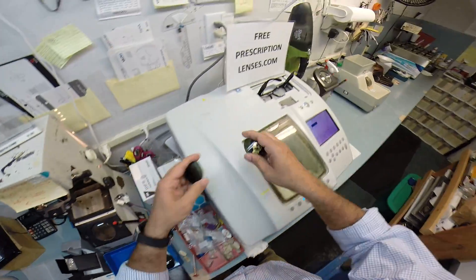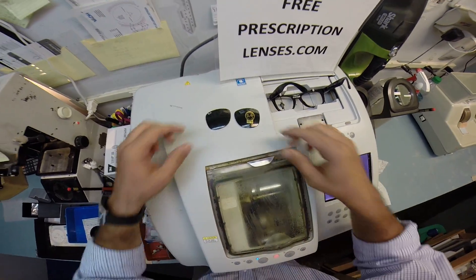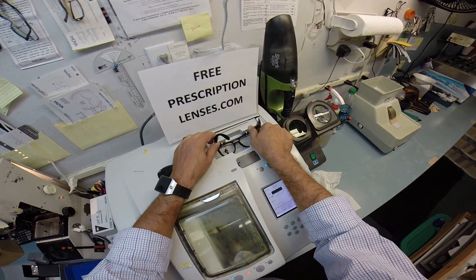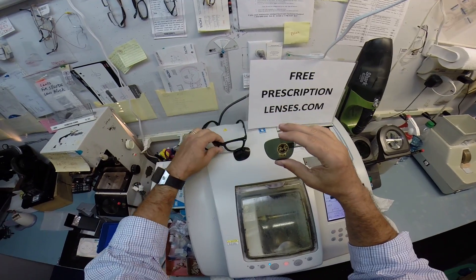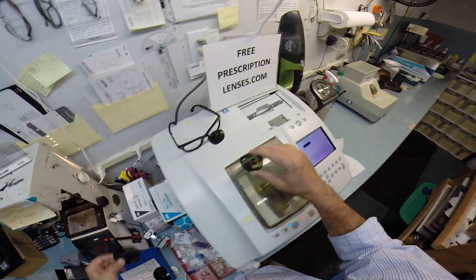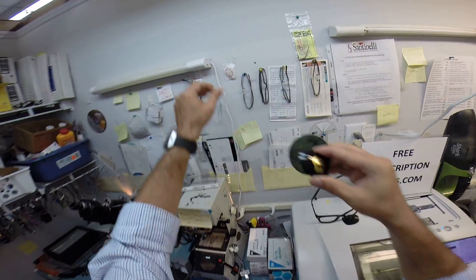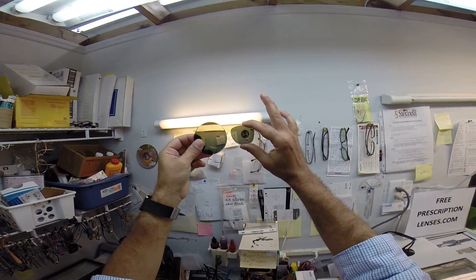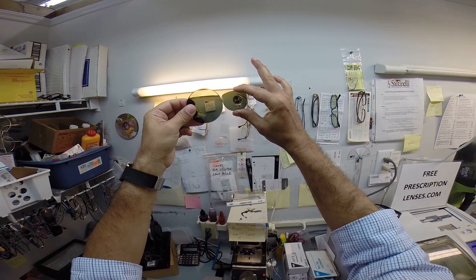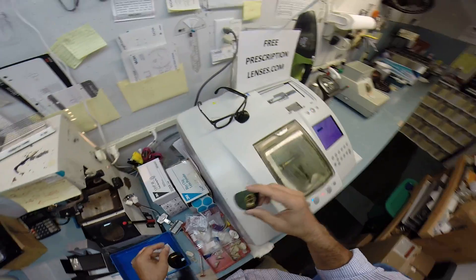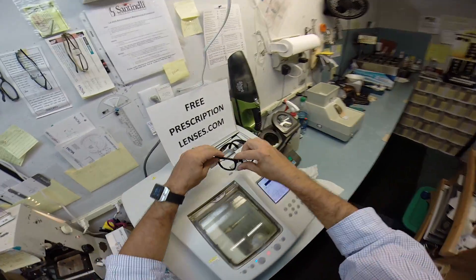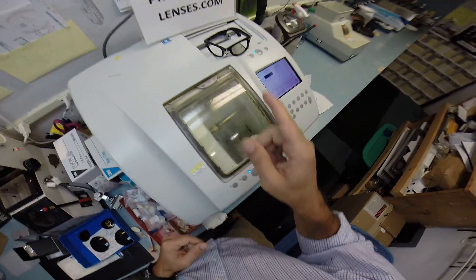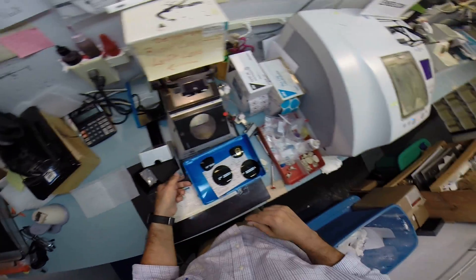So I have removed your original lenses, which takes a few minutes. In order to save time, I've taken them out of your frame. These are the ones that came in there with the little G15 sticker. And let me hold one of your lenses up so you can see how close the color is. Hopefully you can see how close that is. In fact, it's a dead-on match. So let me move. It's running away from me. You're called the Folding Wayfarer, not the running away Wayfarer.